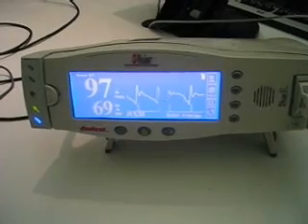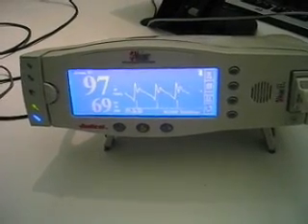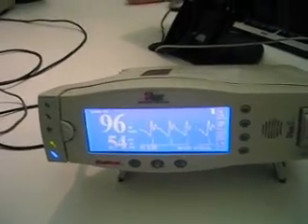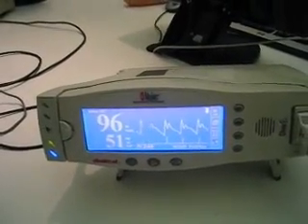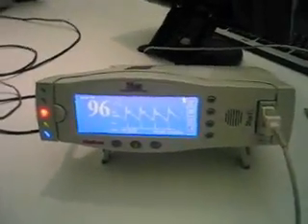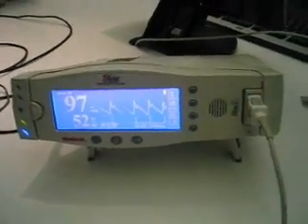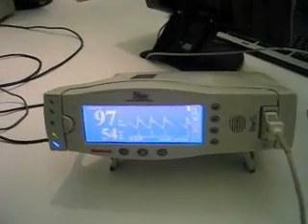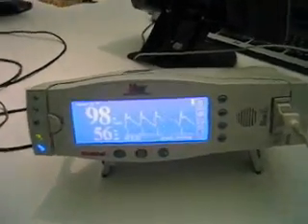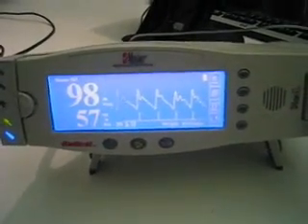65. Oh, it's got faster for you. That's weird. 56, 54. I live for a slow heartbeat. And if you wait until you really can't hold it anymore, it will go up to probably 80 or something. That's what you need, yes.